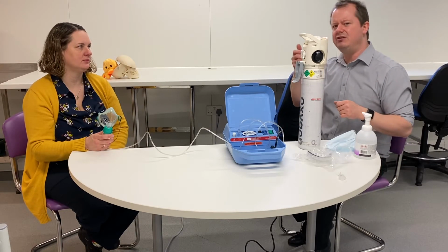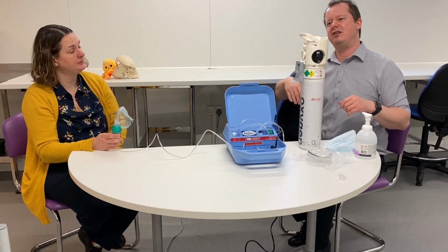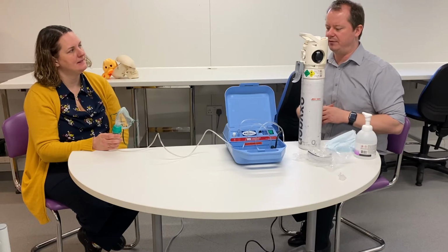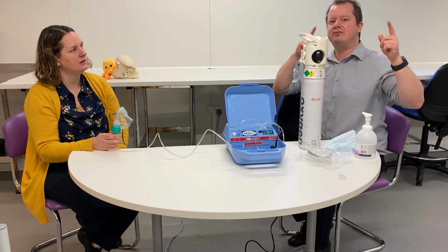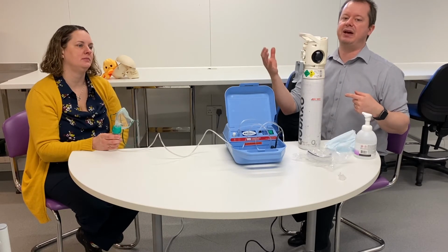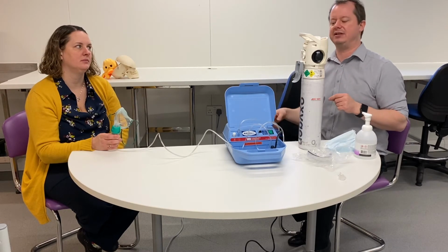But if you turn it up too high, that can be too much pressure for the nebuliser. You can only really turn up to 8 litres per minute, and if it's too much pressure, the tube will pop off. So if your patient is receiving 15 litres per minute, you might need to think carefully about how you're going to get the nebuliser into the patient, yet keep giving them lots of oxygen. We can discuss that when you come and see us.